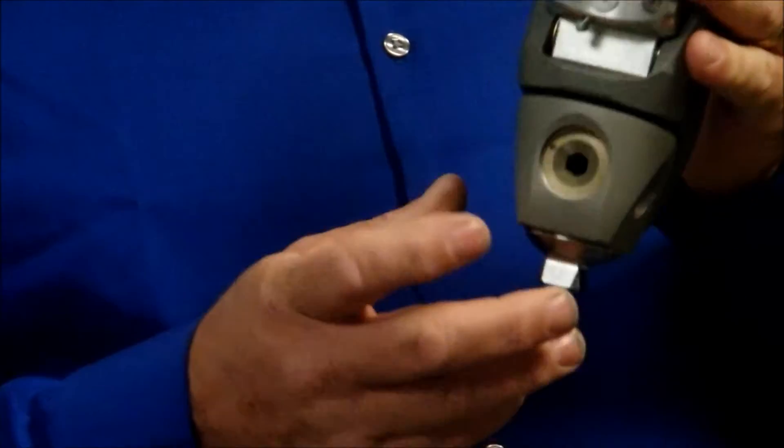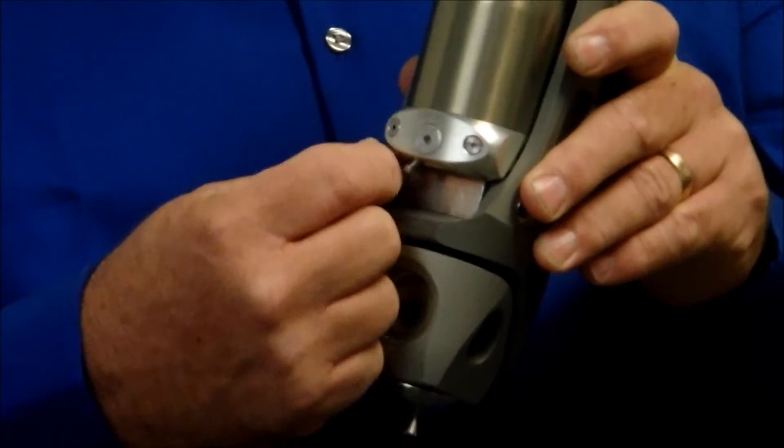And that activation is controlled by this big nut. I'm going to go quickly about the things that I'm going to talk about, individual parts.